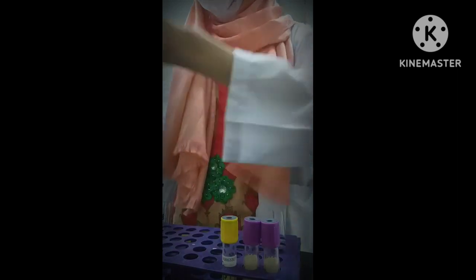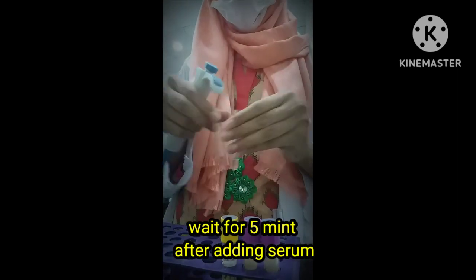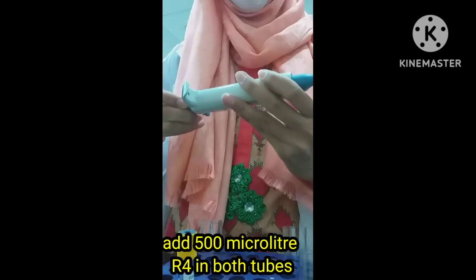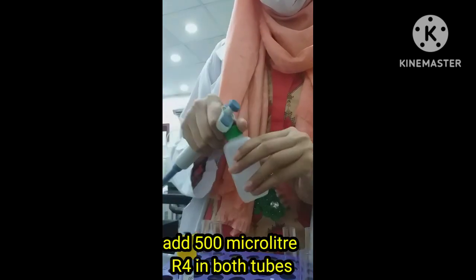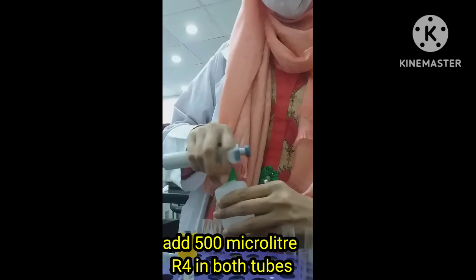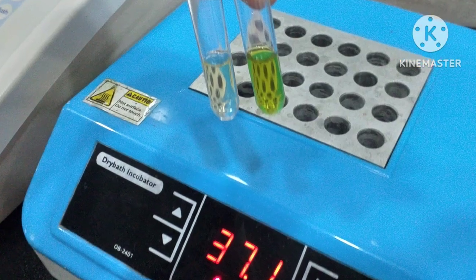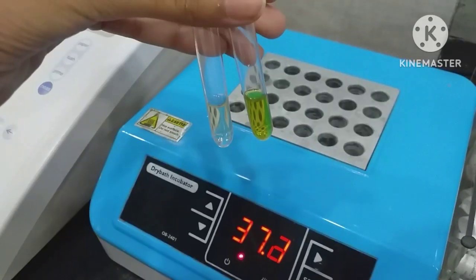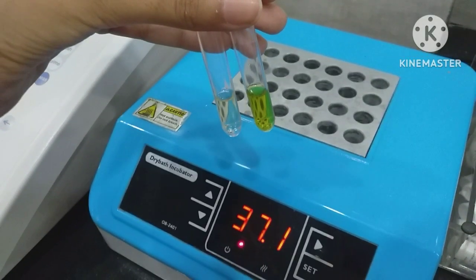After adding serum, wait for 5 minutes. After 5 minutes, add 500 µL of R4 in both tubes. After adding R4, the blank test tube color will appear light yellow and the test tube color will appear green.